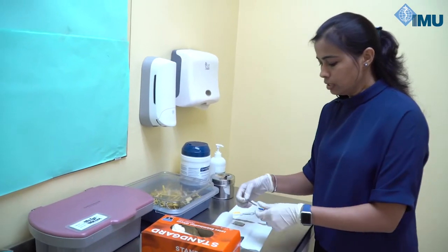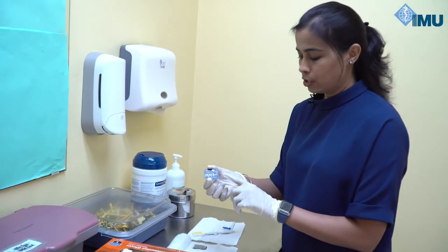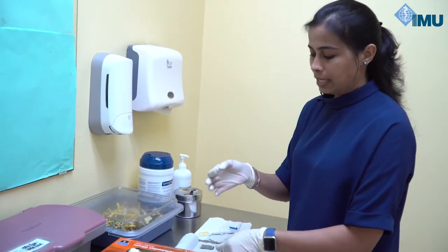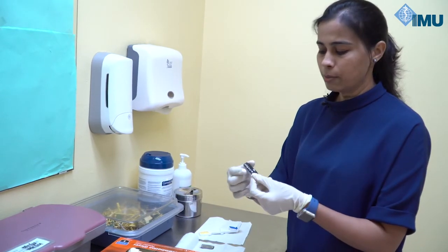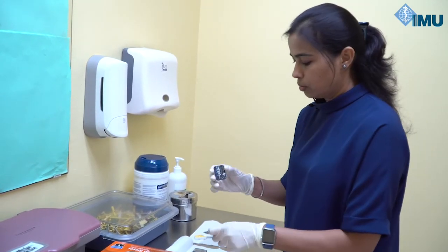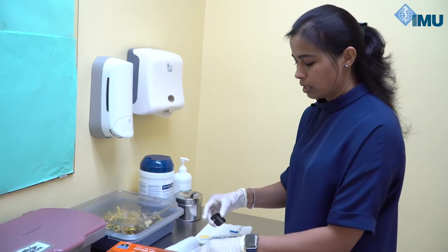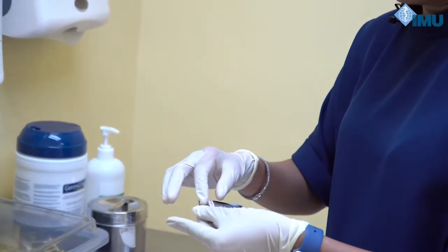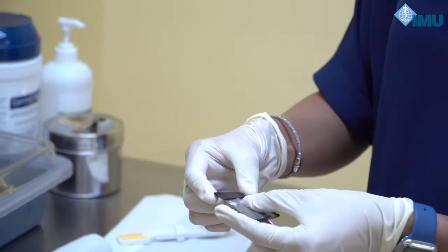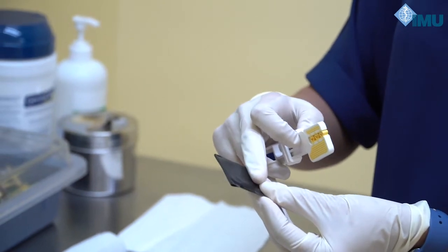For film size, we have size 0 and size 2. Since we selected an adult patient, we go for size 2 — it's written on the plate. Insert your film inside the envelope. This digital sensor is called a photo-stimulable phosphor plate, or PSP. The blue surface is the imaging part of the PSP plate. Make sure this blue surface faces the black surface of the envelope. After inserting the plate, seal the envelope. The imaging side must face the x-ray tube.